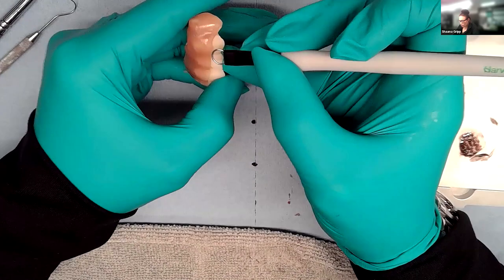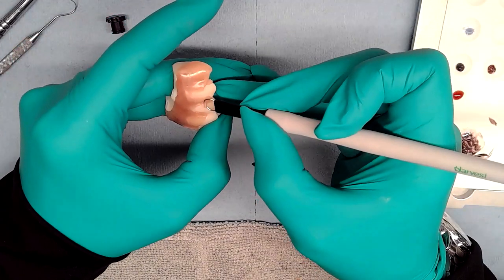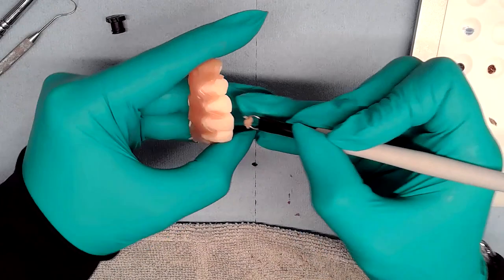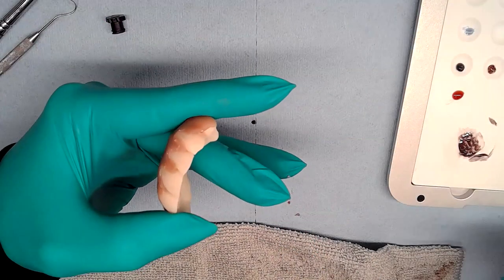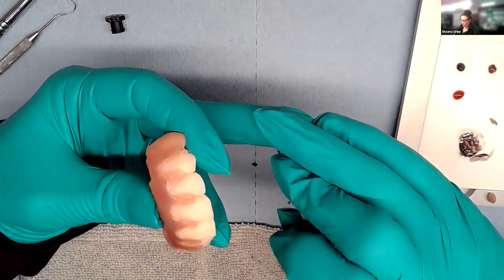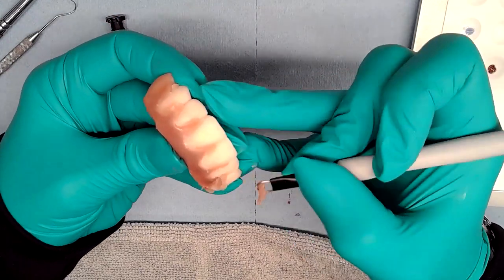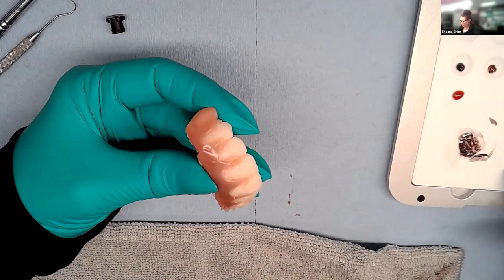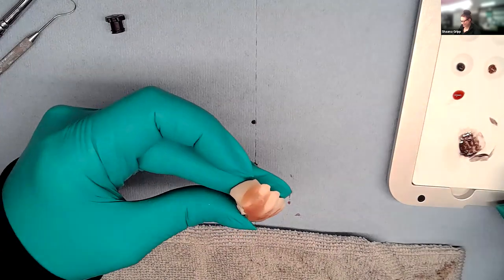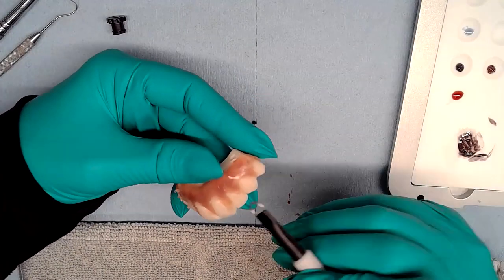It's a little bit warm now, so when she peels the strip she can carve it quickly. She goes straight in with the papilla tool and starts pulling. She reuses the material pulled off toward the distal of the arch if needed — she has a little collection. Her working time with Easy Gum is about 20 to 25 minutes, maybe 30 if lucky, since she has a lot of windows. The Harvest light bar on the warm setting extends working time. Viewers sitting next to direct sunlight will have shorter working time.